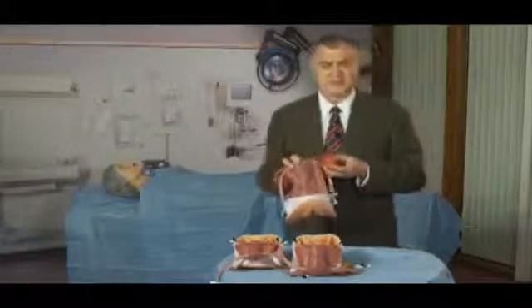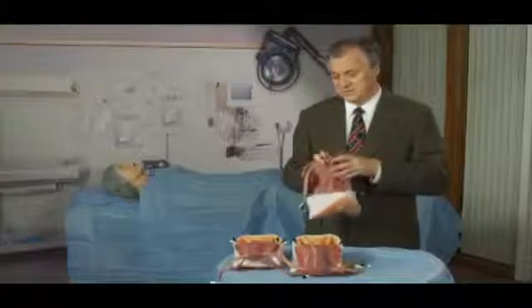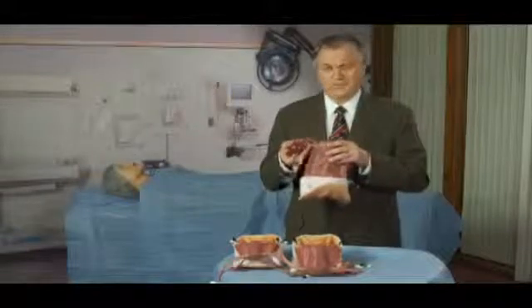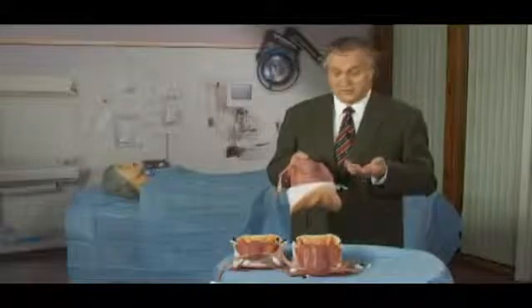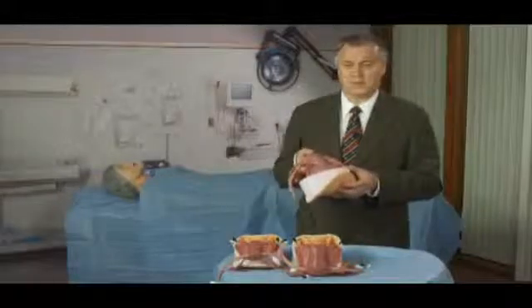This assembly has a normal functioning cyst, so you could do some procedure on a normal cyst. This assembly also has an endometrioma, so you could have your residents, medical students, or other learners resect an endometrioma. Finally, after you've done your 3 procedures, then here again you could do a hysterectomy, such as a vaginal hysterectomy with morcellation or an abdominal hysterectomy.